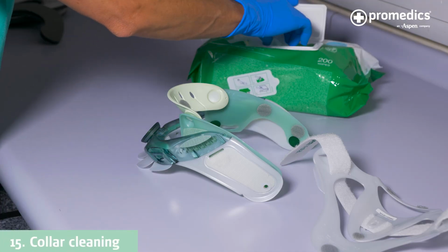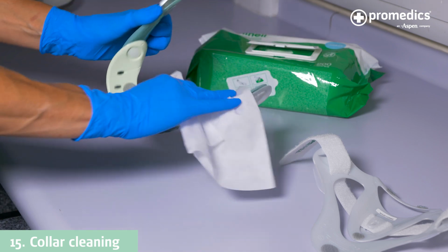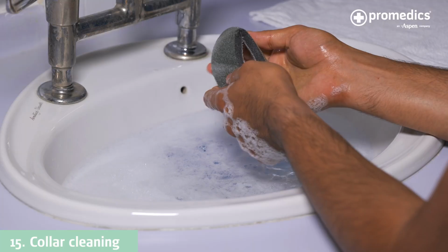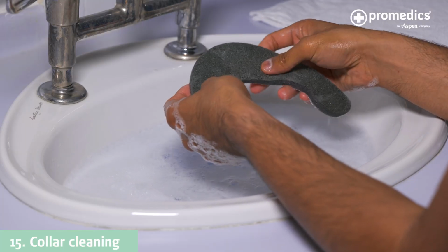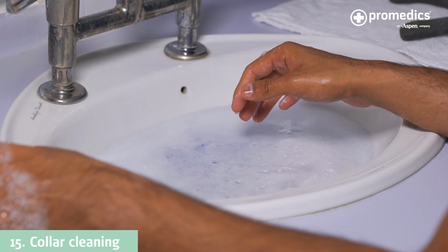The plastic components can be cleaned with either mild soap and water or a disinfectant wipe. Ensure it's dry before the pads are reattached. The pads can be hand washed in mild soapy water and left flat to air dry. Remove the collar at least once per shift.